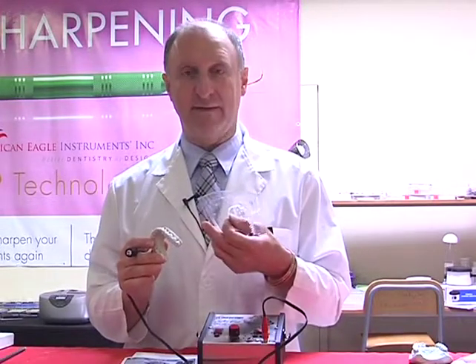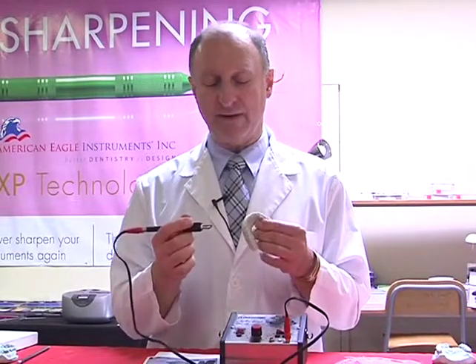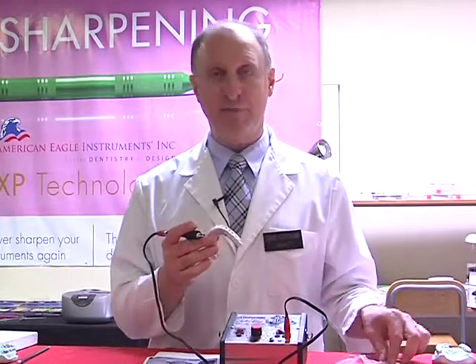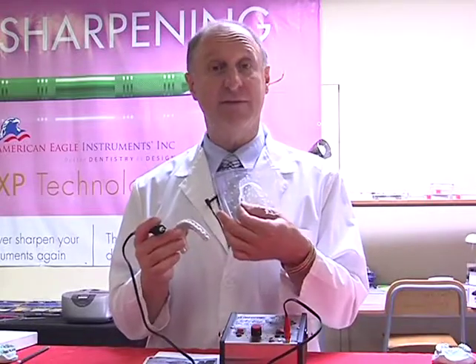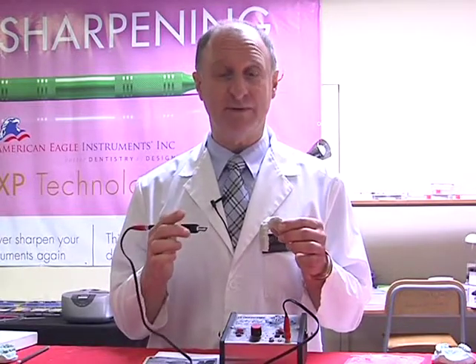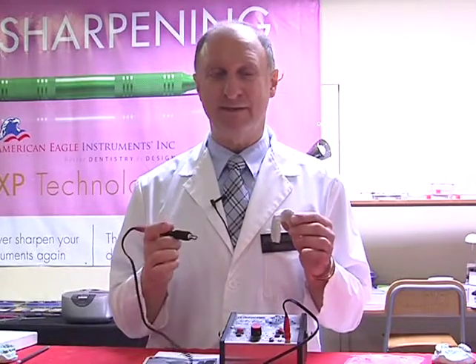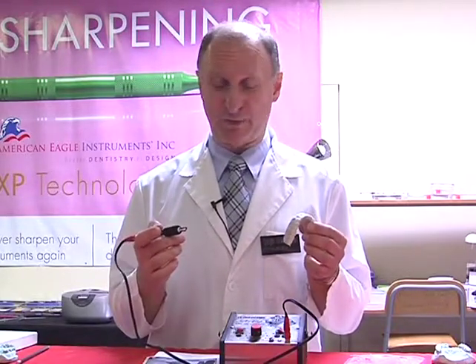Once we've used our razor tip to cut through around all the area, we would then just pull off all the excess, and within 45 seconds we can make a bleaching tray. Now this compares to trimming it manually with a pair of scissors or by using a hot knife and a torch, which takes around 10 to 15 minutes. So hey, listen, 45 seconds, great way to go.